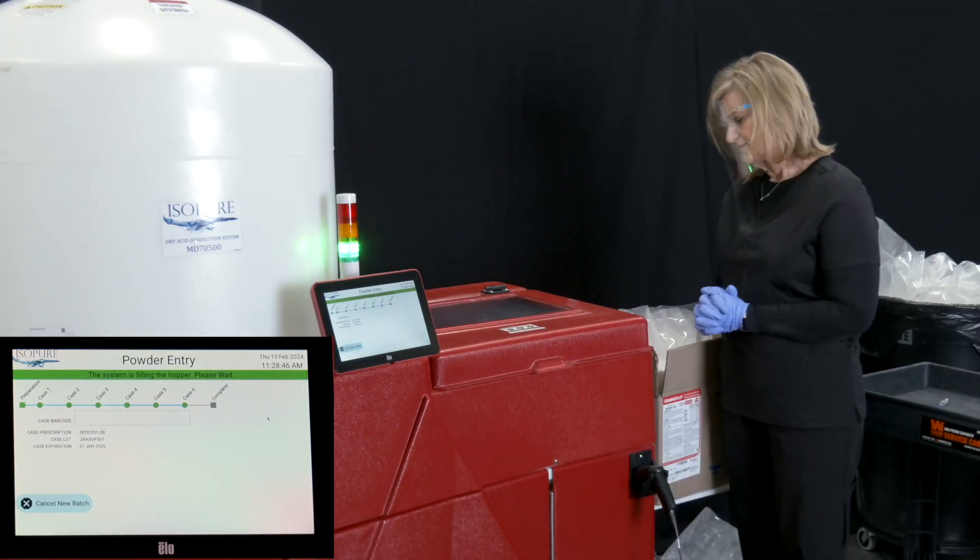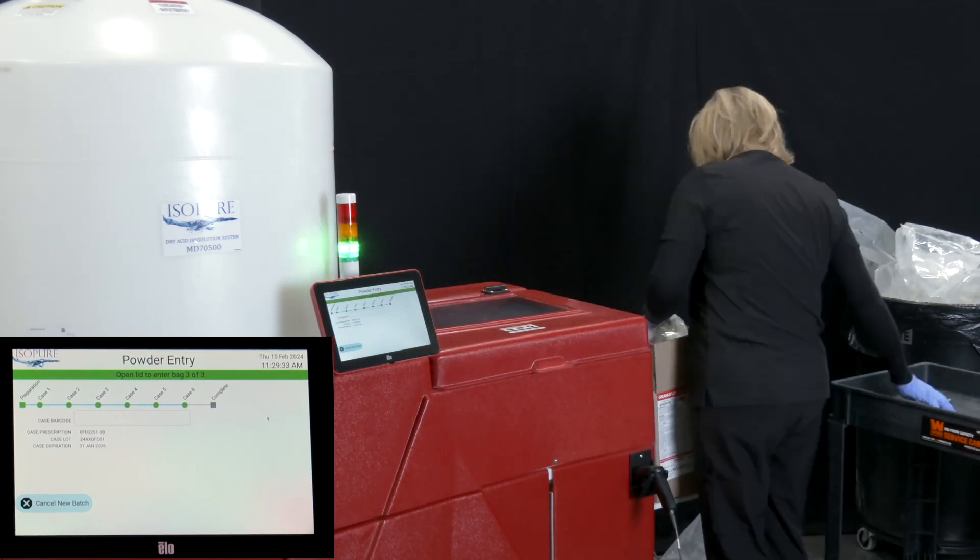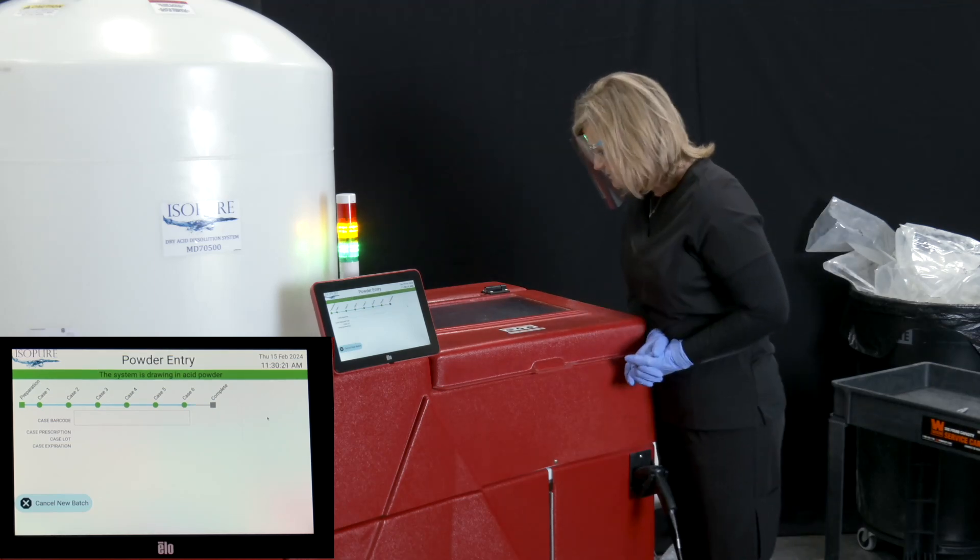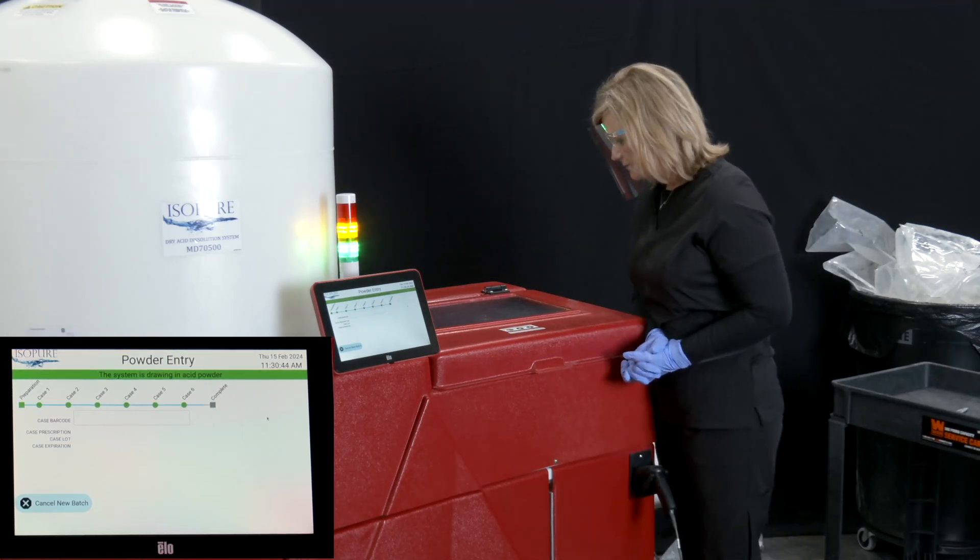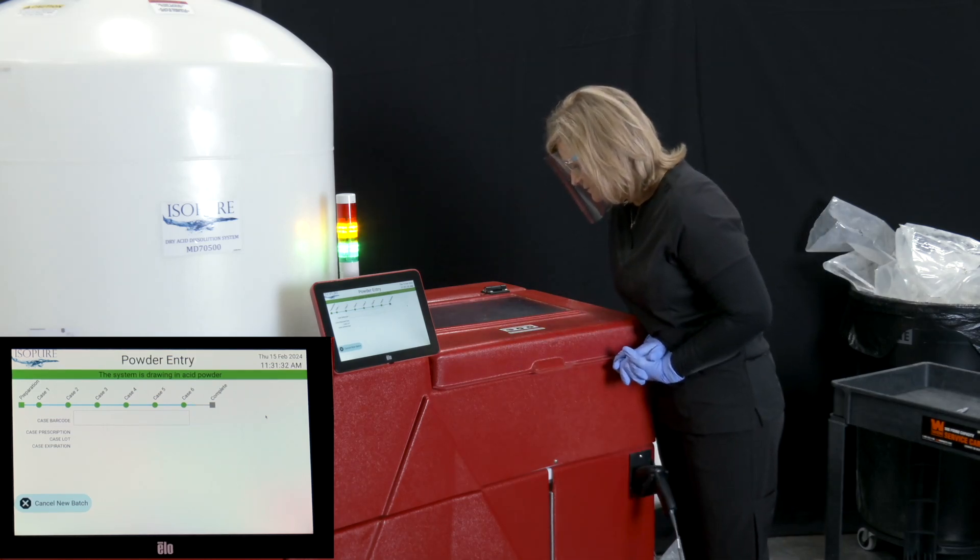Press Confirm Hopper is empty to proceed to the next case. The touch screen will now indicate that the next case should be scanned and the dry acid added. Repeat this process until all required cases have been added.